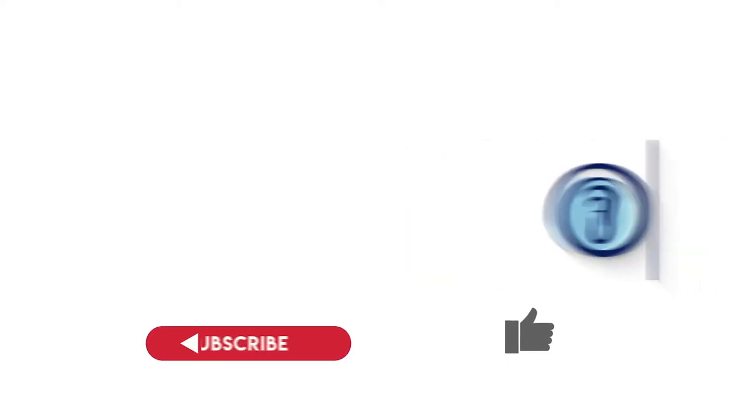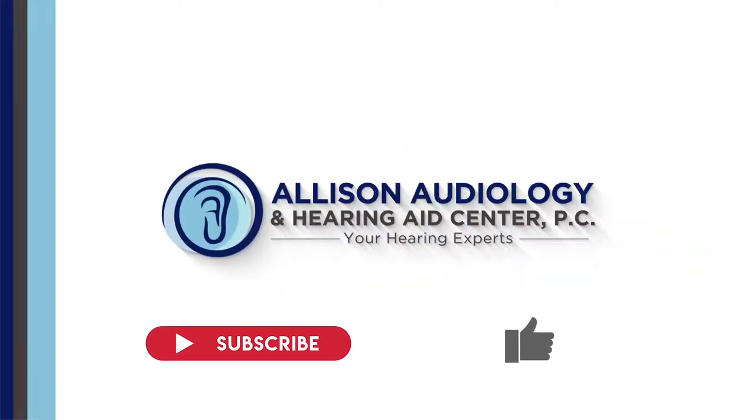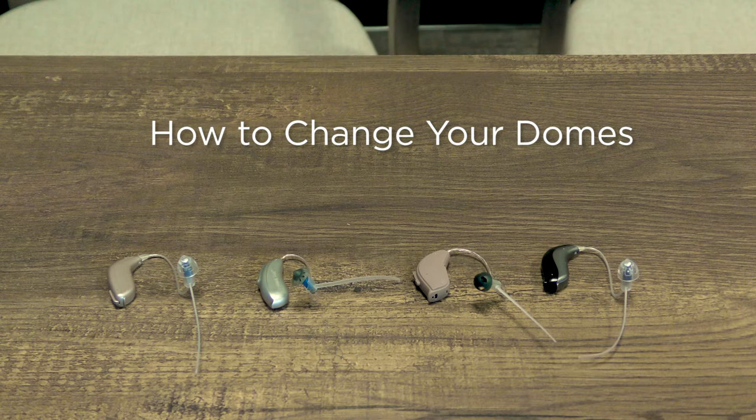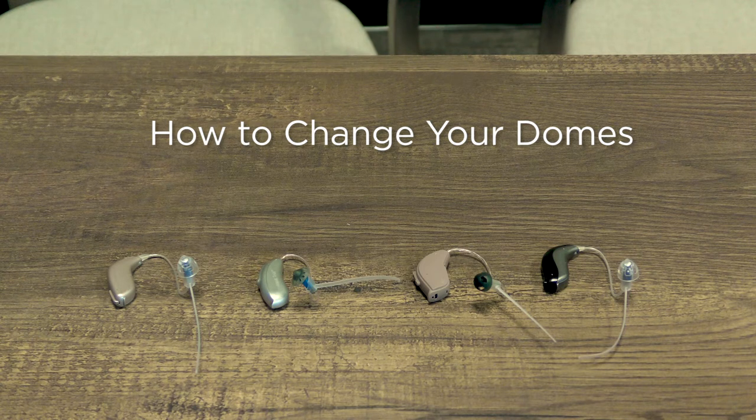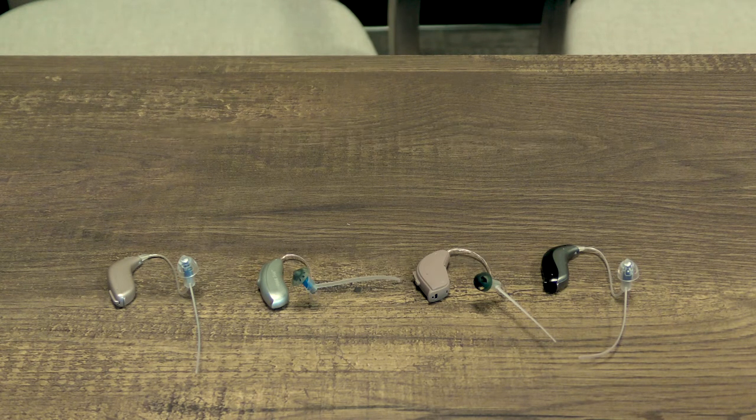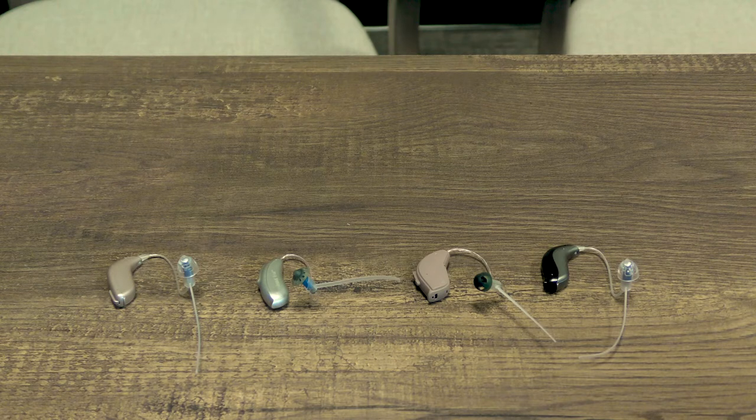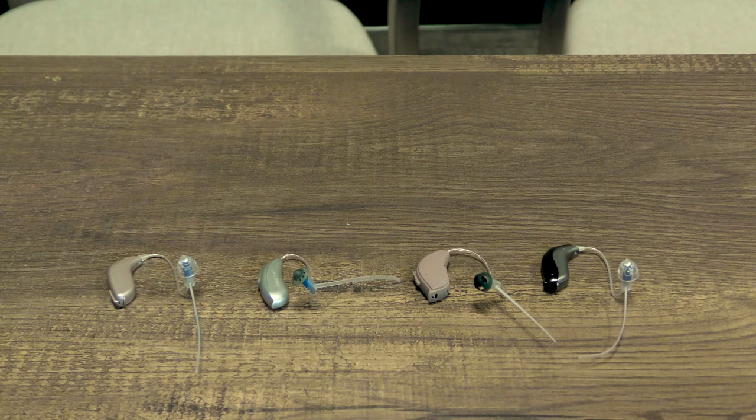Hi, I'm Dr. Rebecca Cahote, lead audiologist at Allison Audiology in Houston, Texas. Today I'm going to go over how to change your domes. Cleaning and changing your domes is very easy and can be done at home to maintain your hearing aids.